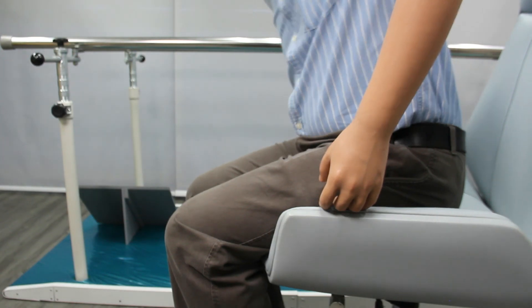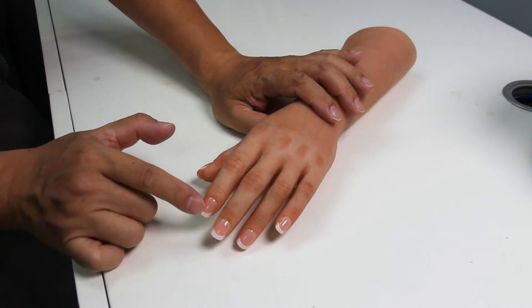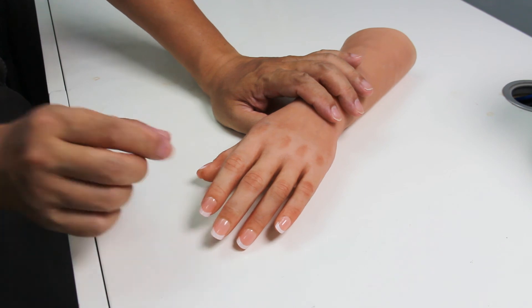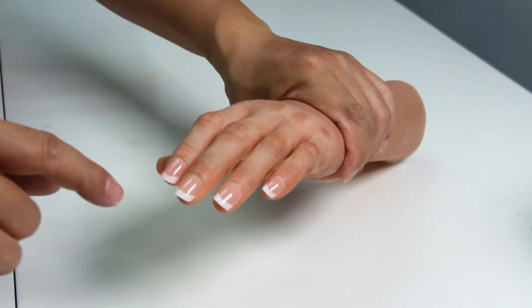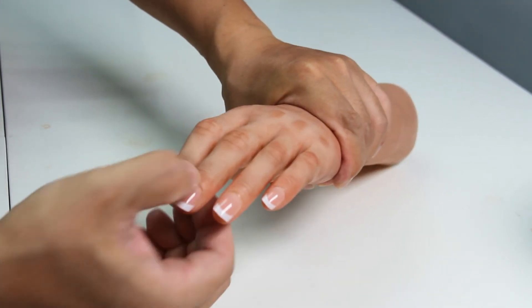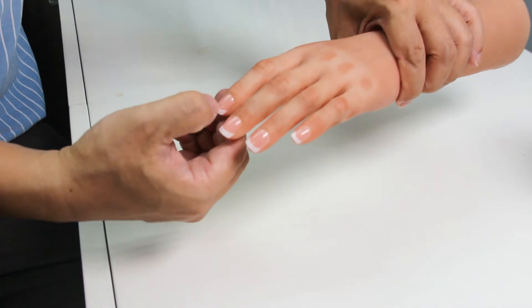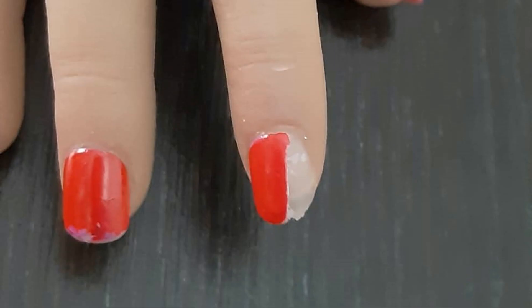Pressing on the prosthesis while standing up is also damaging. When you have an acrylic nail together with wire fingers or hinged fingers, please pay attention while bending the finger. In normal cases, bending and pressing the fingers will be fine. However, when there is an acrylic nail, please bend from the joints. If the patient always presses on the acrylic nail to bend the finger, the acrylic nail may wear off faster or even crack or fall off.